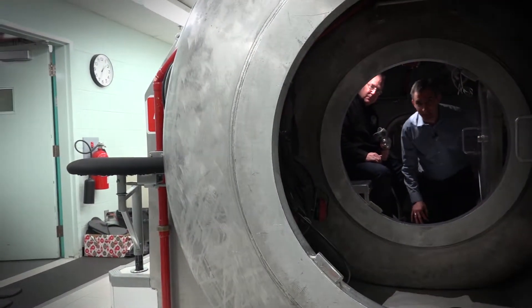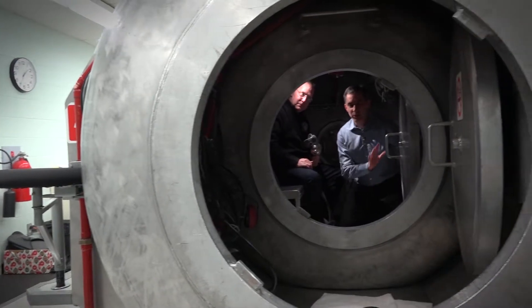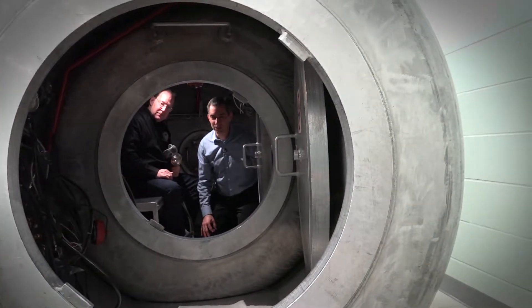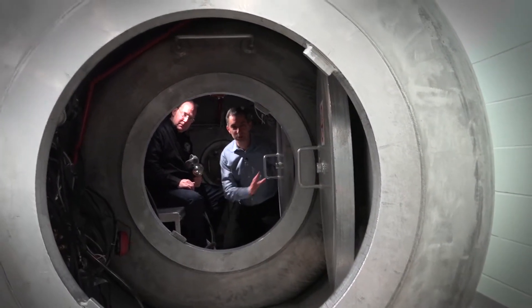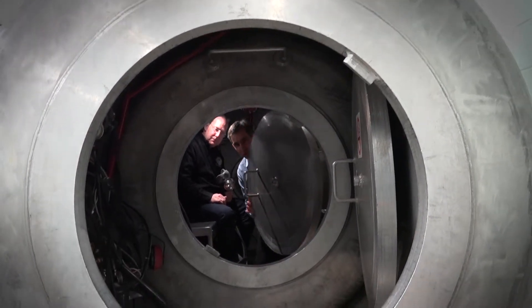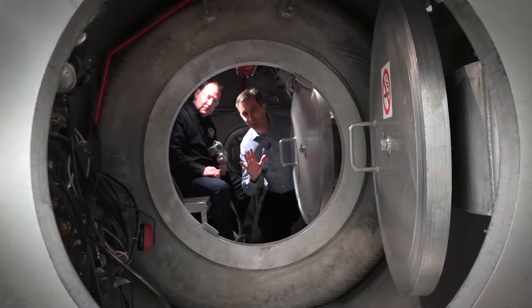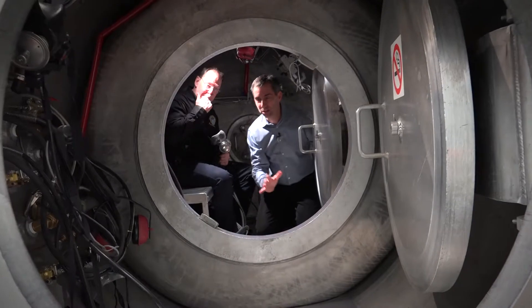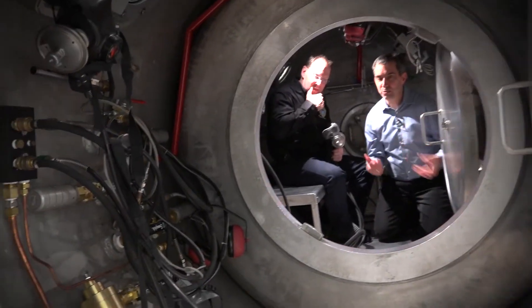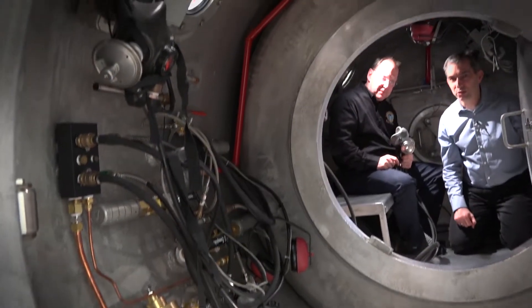We're now inside the hyperbaric chamber. When we start the treatment, we will close this steel door — the pressure will keep the door sealed. Then we can pressurize the inside of the chamber.